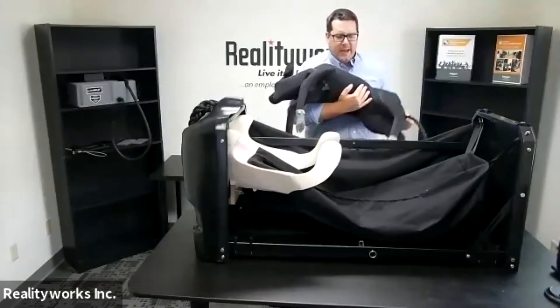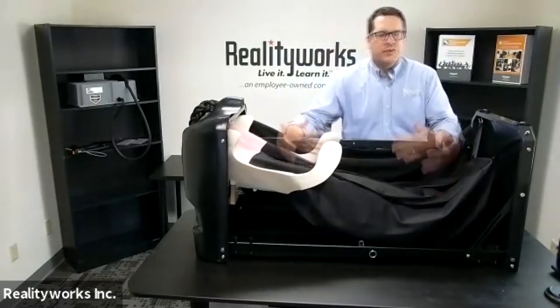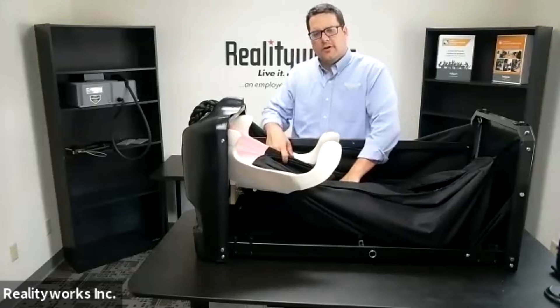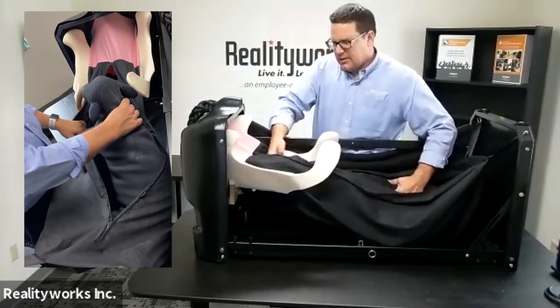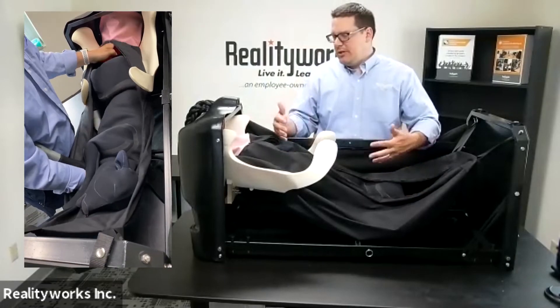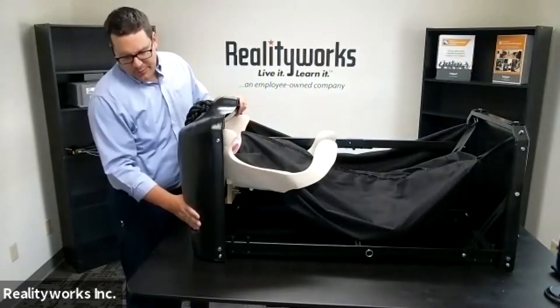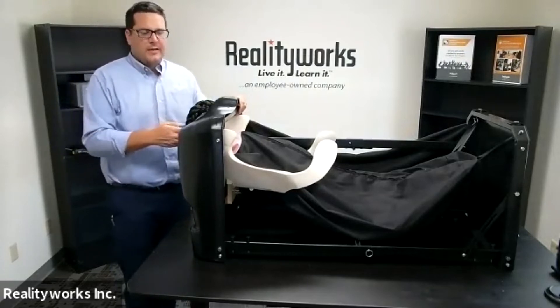I'm going to put the calf in — it has some good heft to it. You can place it in the reproductive bag here. You can teach students the different birthing positions, including how the fetal calf might get below the pelvic girdle and how you need to bring that up. You can put it in many different positions to practice pulling it out. The product also has the ability to put chains or ropes on it to do a pulling mechanism, allowing your students to learn all of that as well.